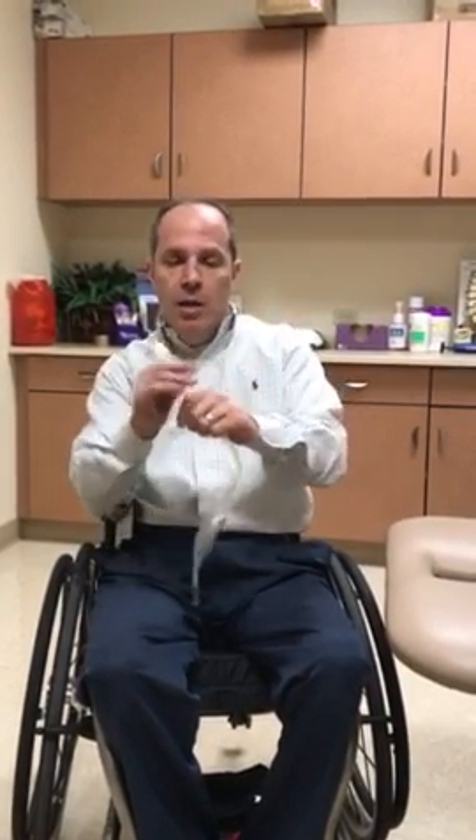A lot of people with the unattached bag will just either have an extension tube go into the toilet or go into a urinal. Also inside here is a BZK pad. I can show you how I open this with limited dexterity — some people use their teeth, but I actually use a pair of scissors. I have quad scissors where I go down the side and pull it out. The catheter itself is really nice. We sterilize it with radiation treatment, which makes sure everything is perfectly sterile. It has a hydrophilic coating — nice and thin over the catheter.